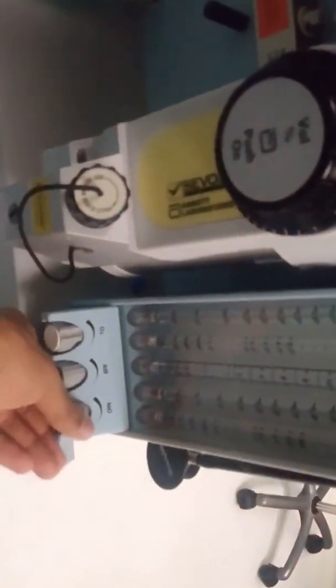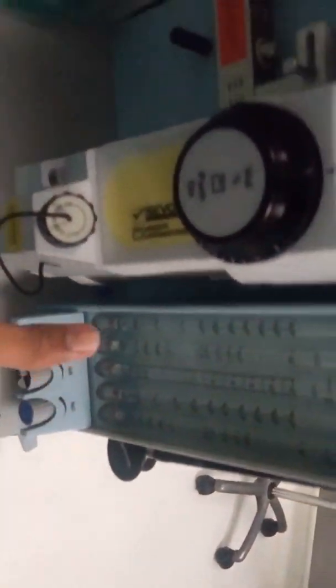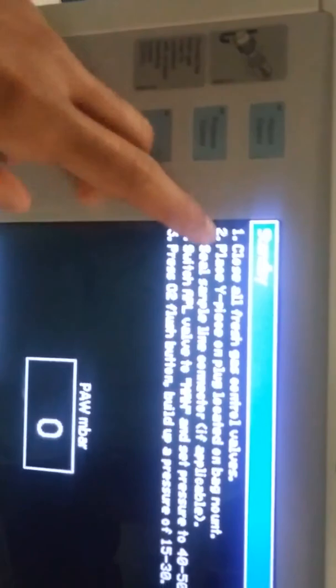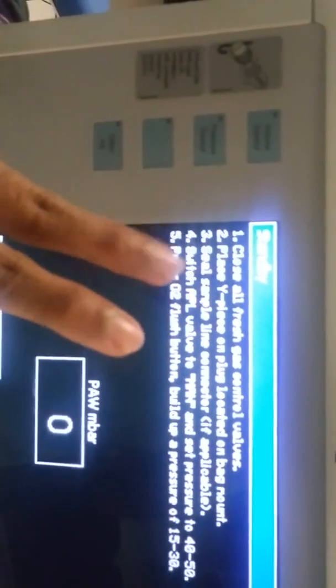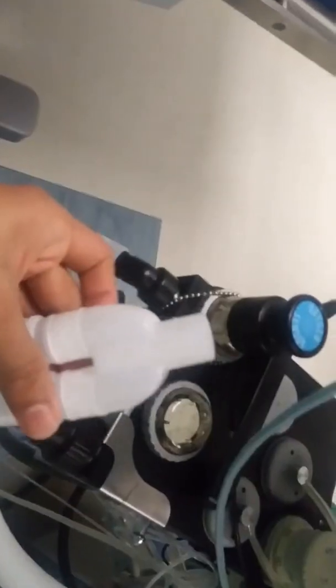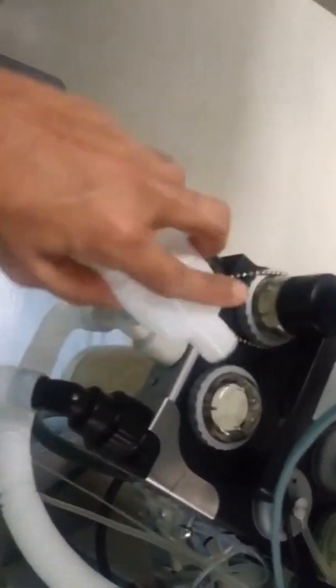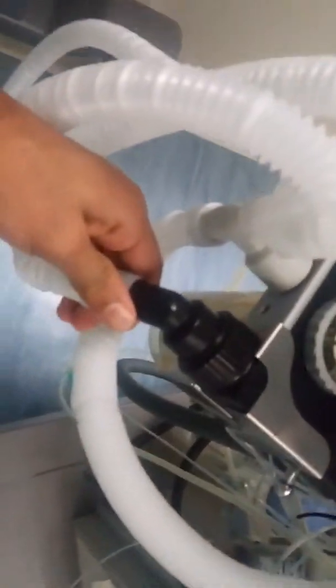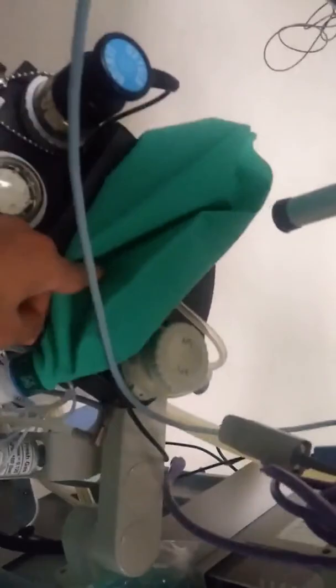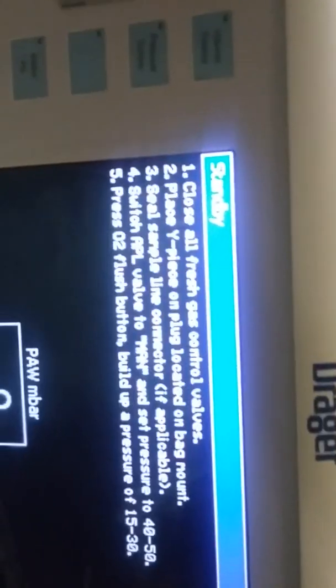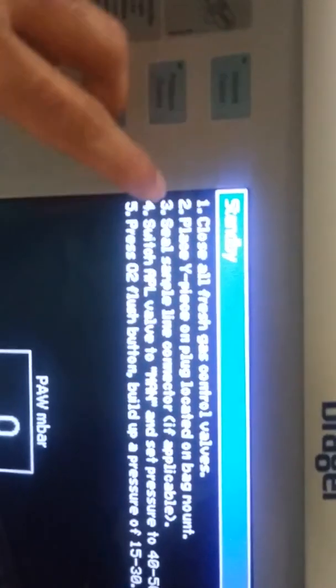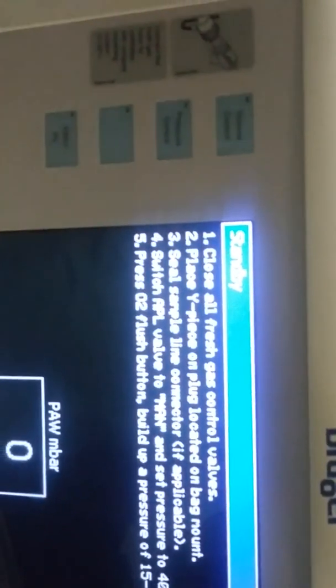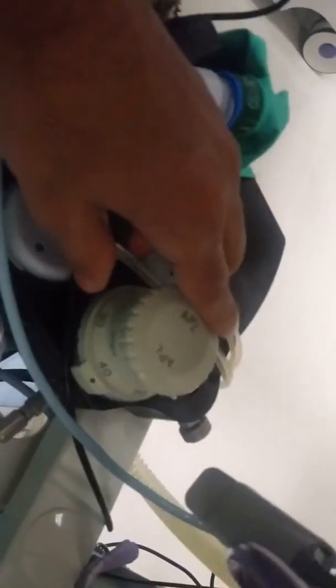Second step, close the Y-piece of the breathing system. In the breathing circuit take the Y-piece and close by the closer or by any closing valve. Third step is remove the humidifiers if connected. If any humidifiers or ETCO2 sample connector, it detects some leakage and some incorrect prediction about compliance. After some time calibration done. Fourth step is to adjust the APL valve - adjustable pressure limiting valve. Put valve in manual mode around pressure 40 to 50. APL valve is situated in breathing system.